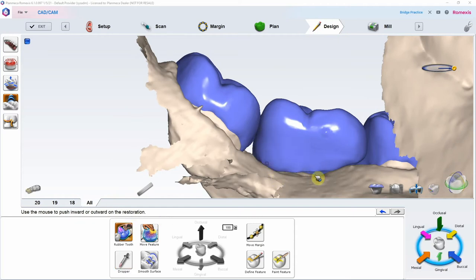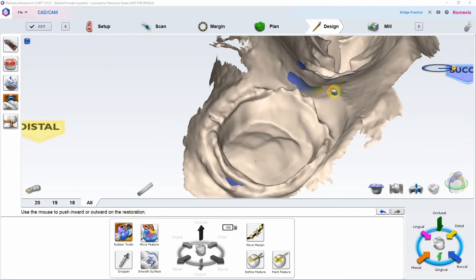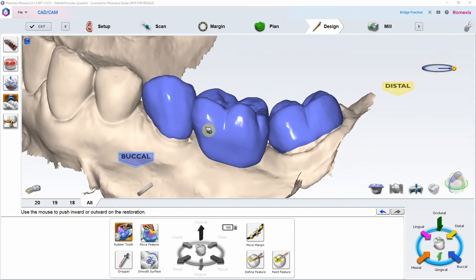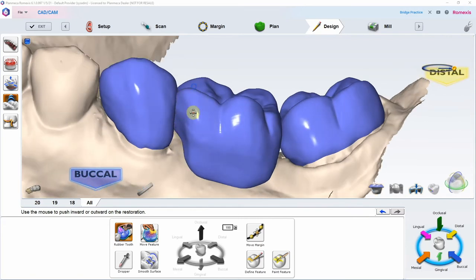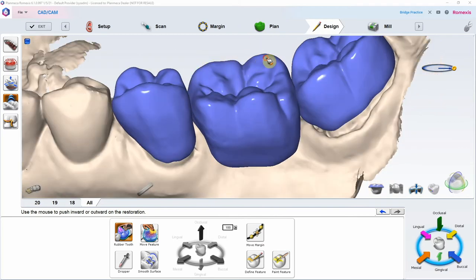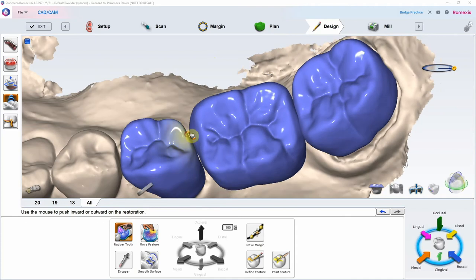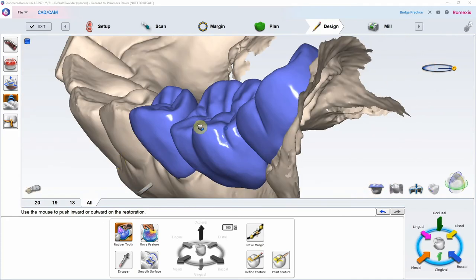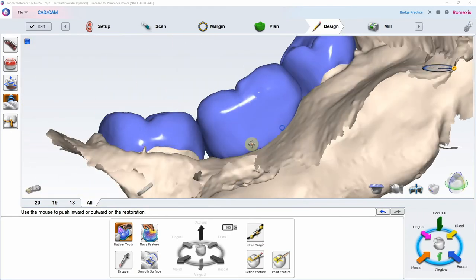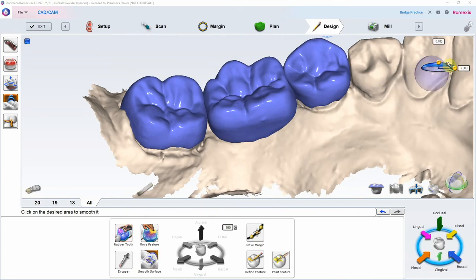Because this is a bridge, we want broad connectors — long, broad, and deep. So over-contour a little bit in the connector area. Rubber tooth the pontic down, putting a little bit of pressure on the tissue beyond the default. We'll need to modify this because it's a ridge lap pontic, which is not cleansable. Round the pontic site, decrease the height of non-functional cusps, and try to expand the premolar. That's the rough initial outline.